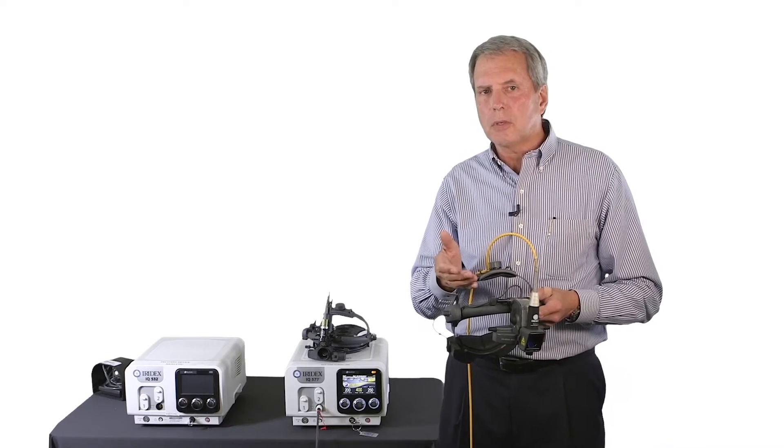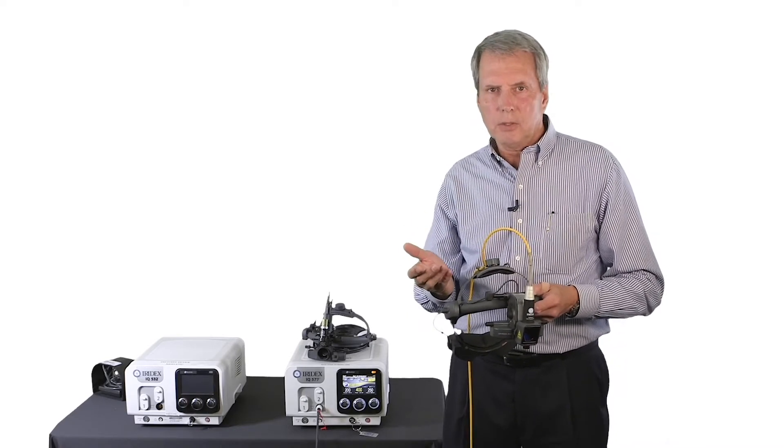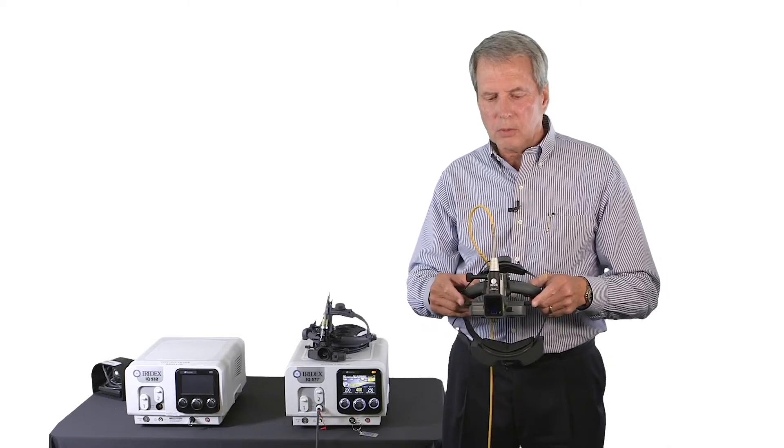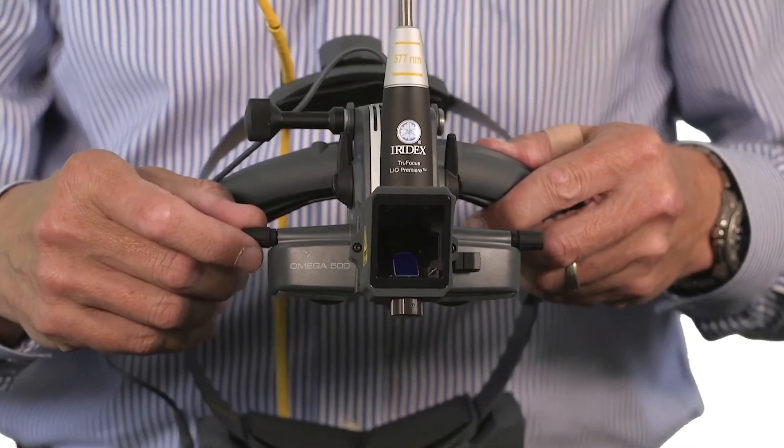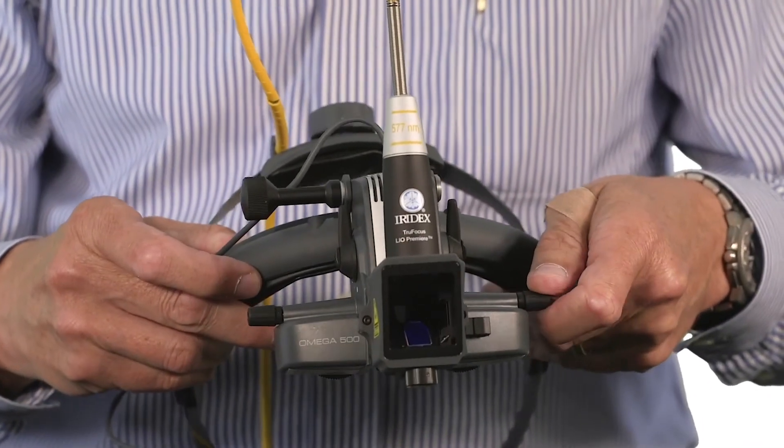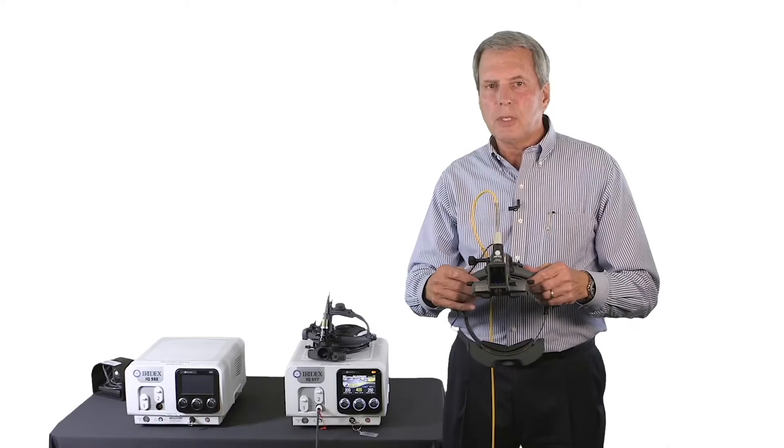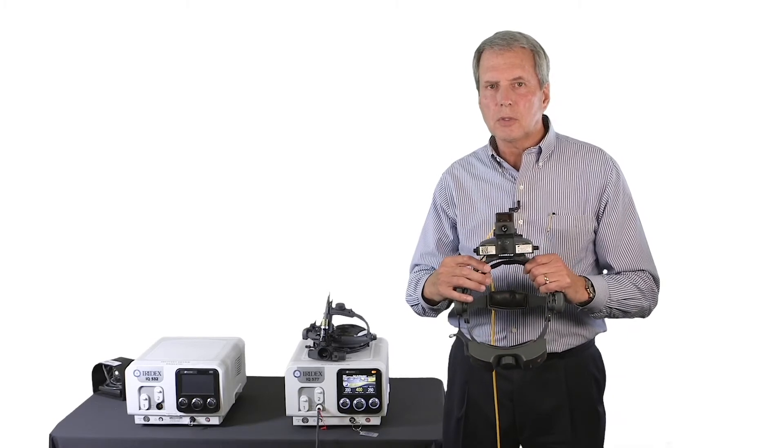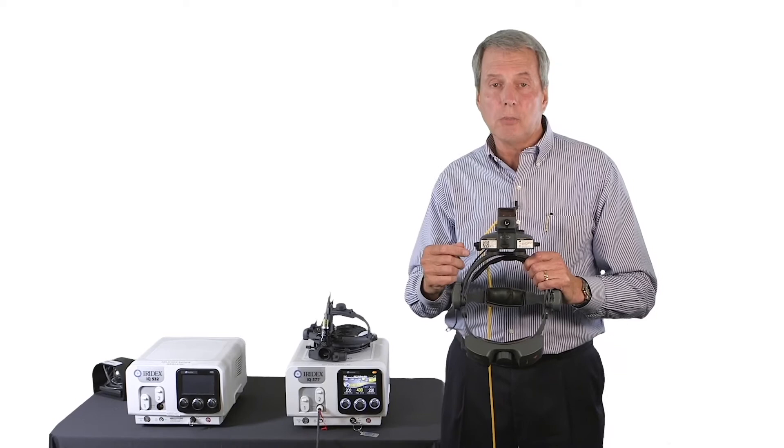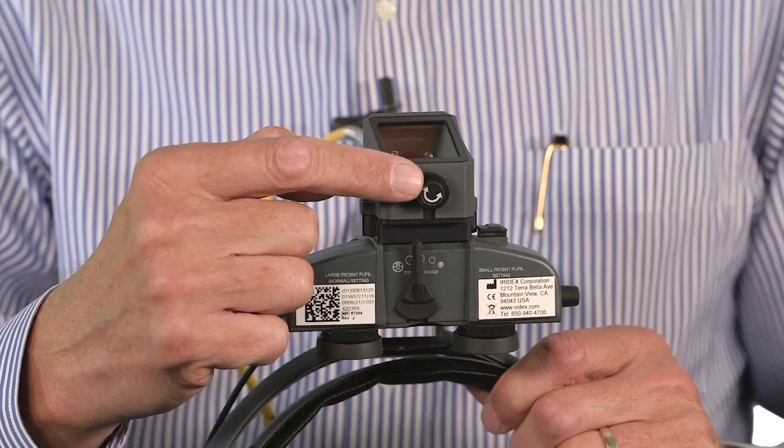Now, the difference between the TrueFocus and the legacy, or the older style, is that the newer TrueFocus allows you to adjust the illuminated field left and right with the right knobs here. They both do the same thing. The big difference is your surgeons will not be familiar with adjusting the vertical nature of the aiming beam, laser aiming beam, which is here.